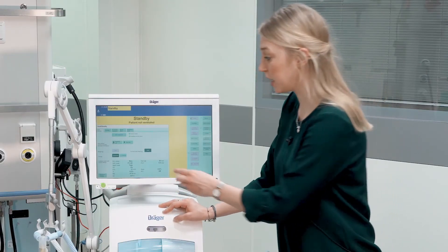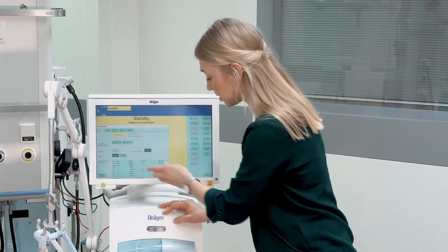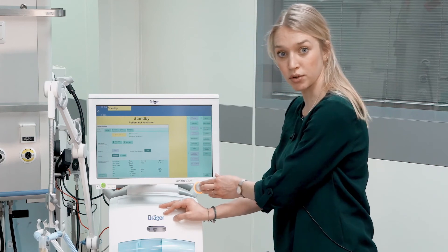Afterwards, we can start ventilation by selecting Start and confirming by pressing the rotary knob.